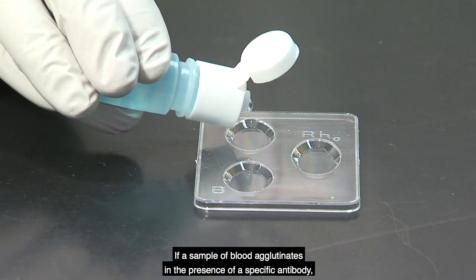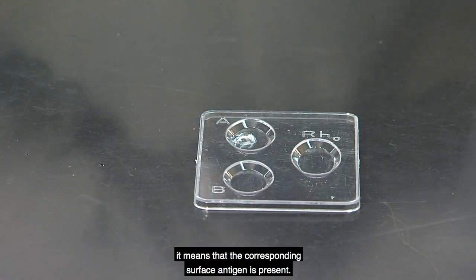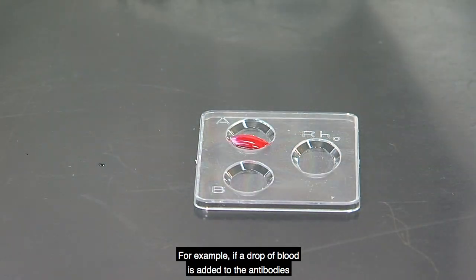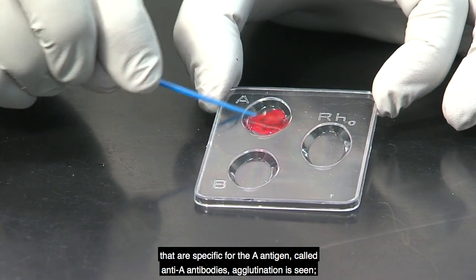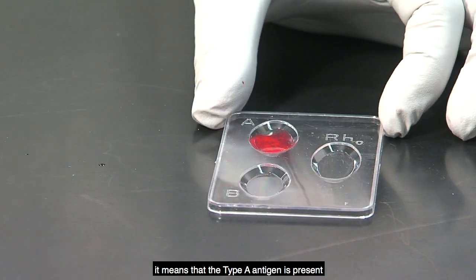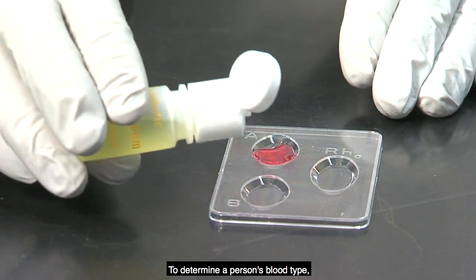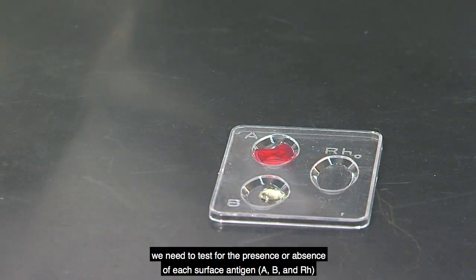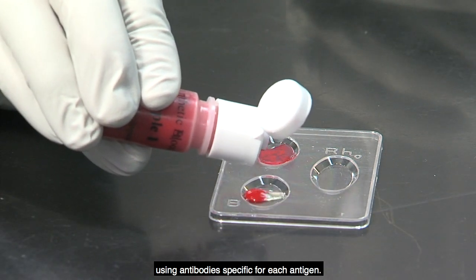If a sample of blood agglutinates in the presence of a specific antibody, it means that the corresponding surface antigen is present. For example, if a drop of blood is added to the antibodies that are specific for the A antigen, called anti-A antibodies, agglutination is seen. It means that the type A antigen is present on the surface of the red blood cells in the sample. To determine a person's blood type, we need to test for the presence or absence of each surface antigen, A, B, and Rh, using antibodies specific for each antigen.